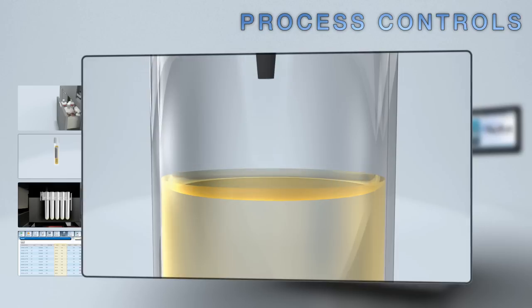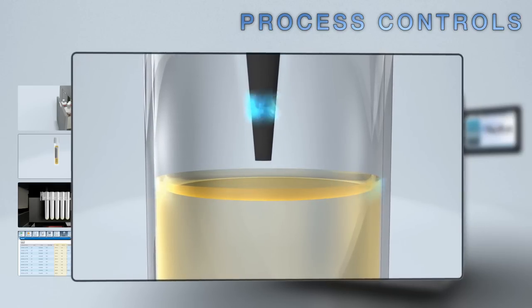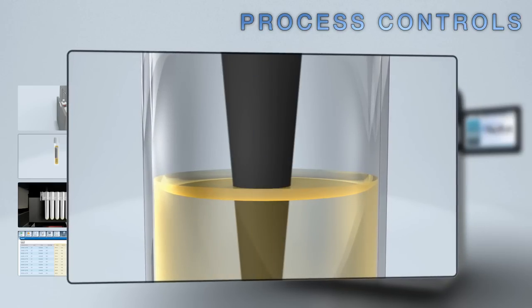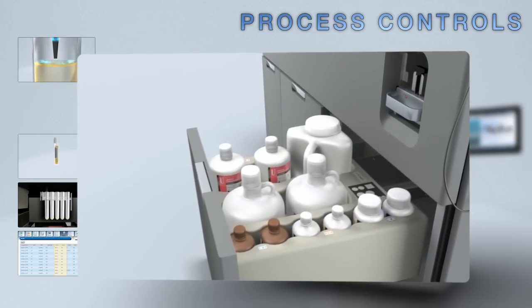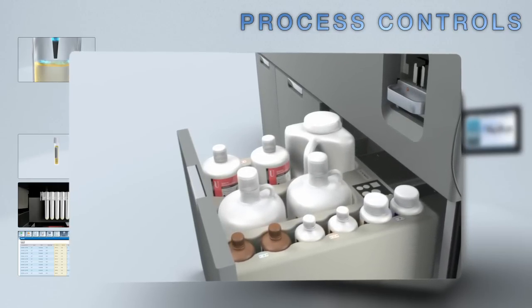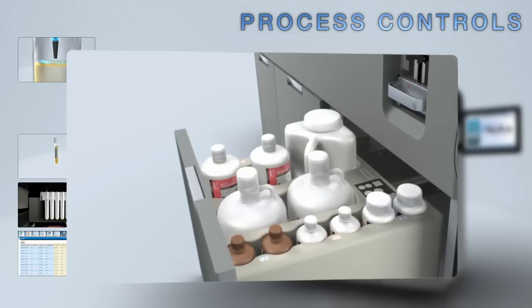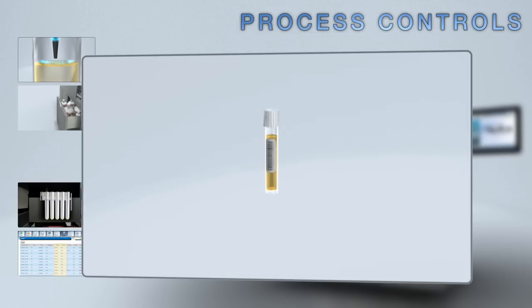Liquid level sensing ensures that the correct volume of reagent is aspirated and dispensed for every reaction. The instrument maintains the reagent inventory maximizing assay utilization and providing you with full walk-away capability.